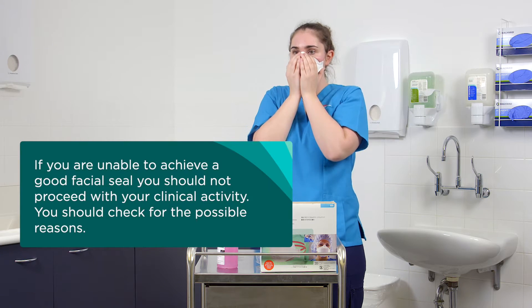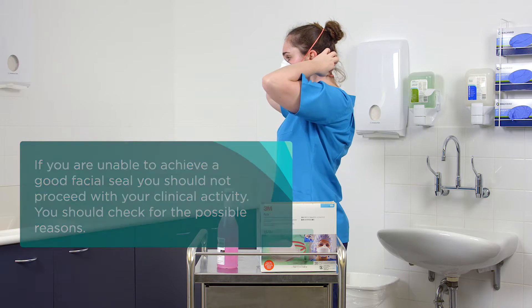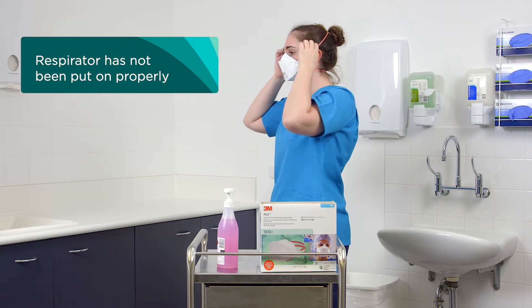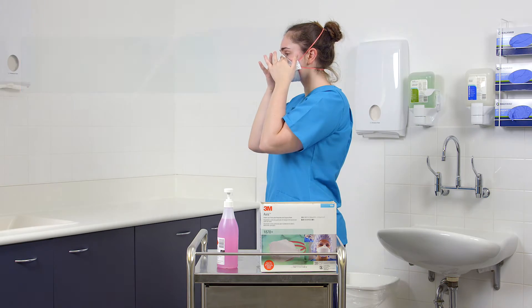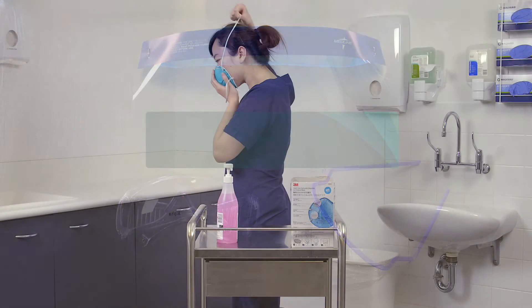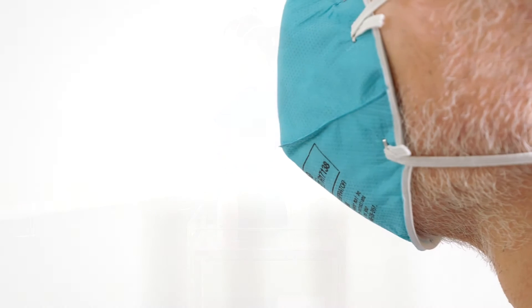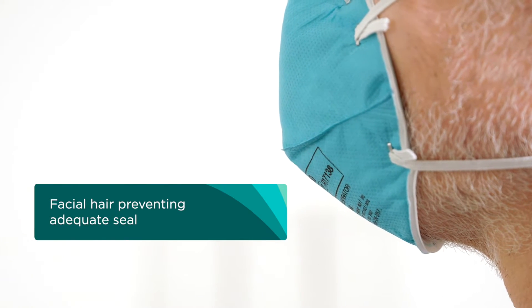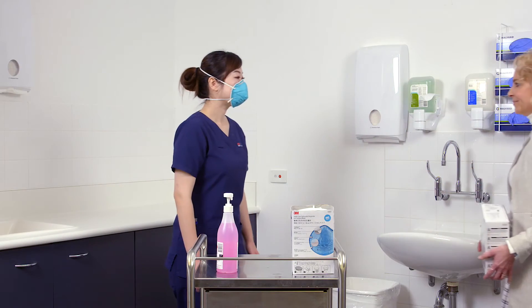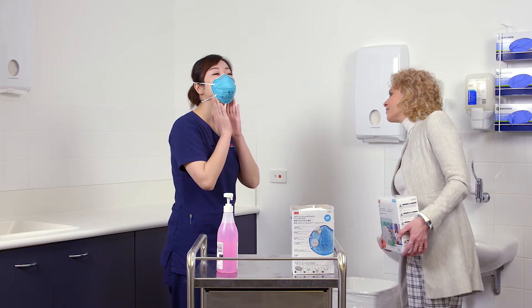If you are unable to achieve a good facial seal, you should not proceed with your clinical activity. Check for possible reasons including: the respirator has not been put on properly — for example, headbands are incorrectly positioned, hair or earrings are caught in the seal, glasses or face shield are interfering with the seal. The respirator may be the incorrect size or type for your face. Facial hair may be preventing an adequate seal between the respirator and the wearer's face.